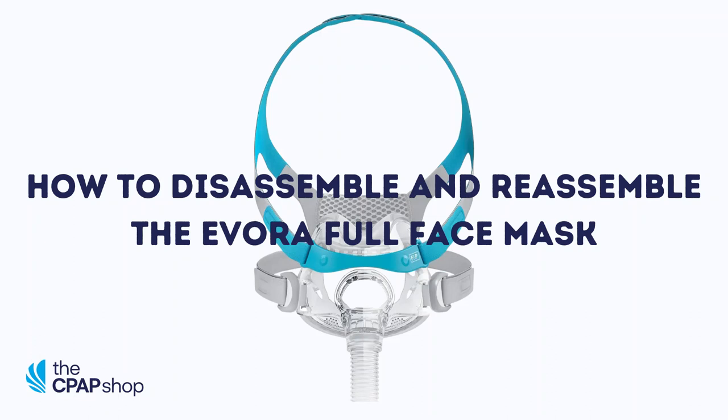Hello, my name is Carly from the CPAP shop. Let's review how to disassemble and reassemble the Evora full face mask.